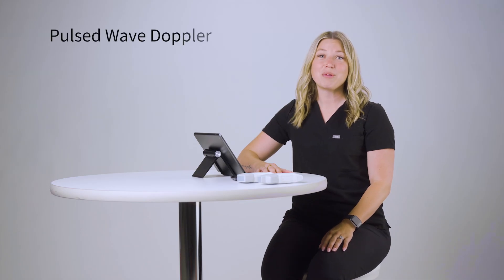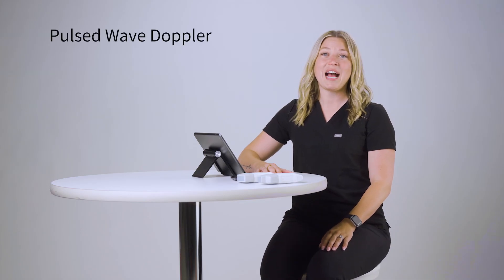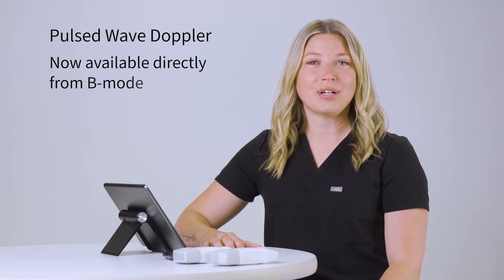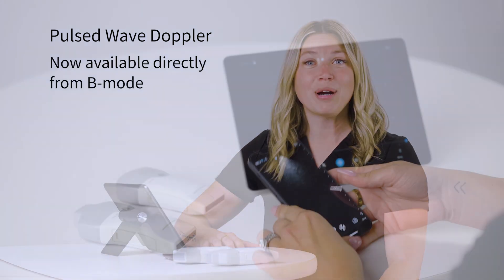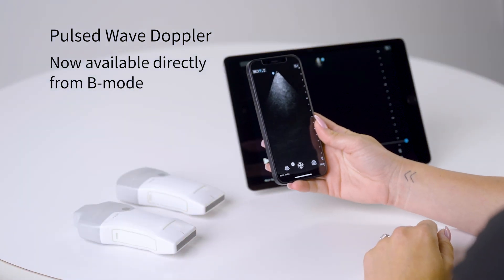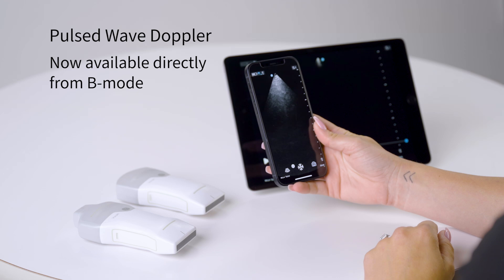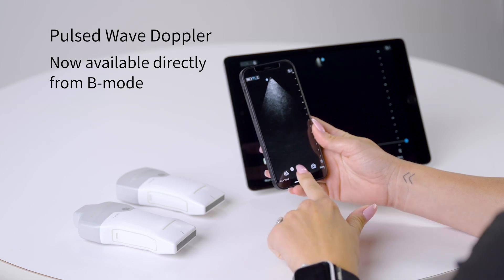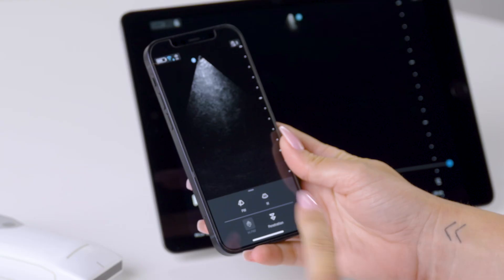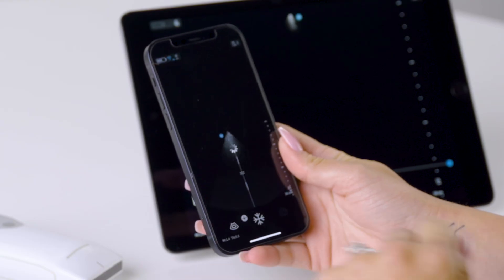First, we made a change that's been highly requested. Pulse Wave Doppler is now available directly from B Mode. Previously, you had to be in color to activate. Just tap the plus icon here and you'll have access to PW.